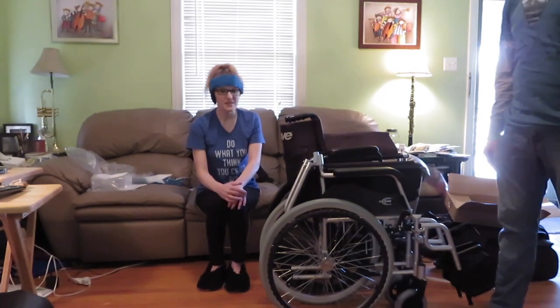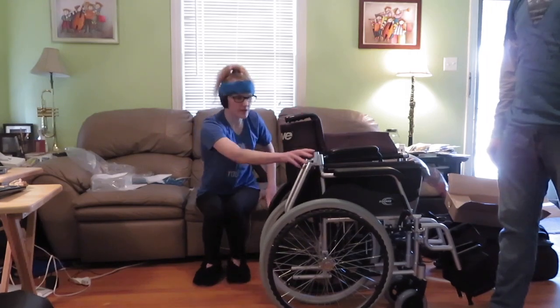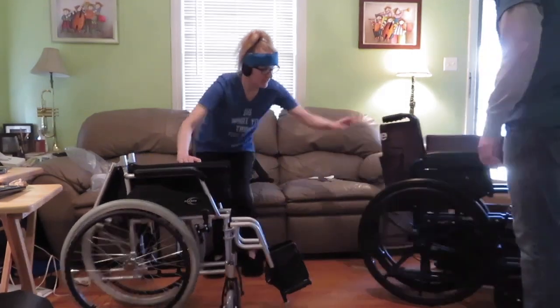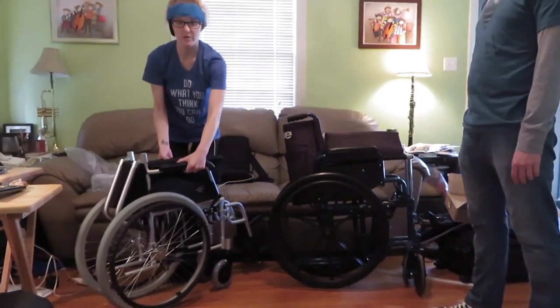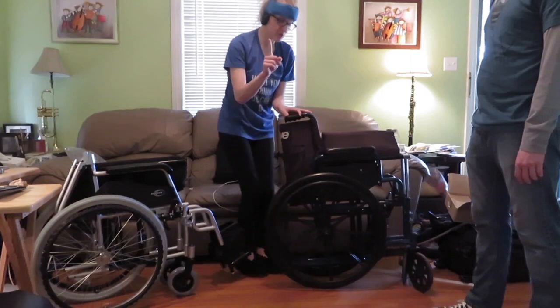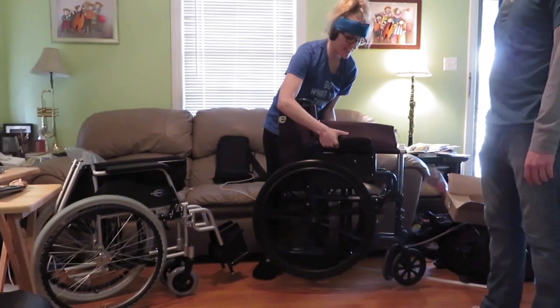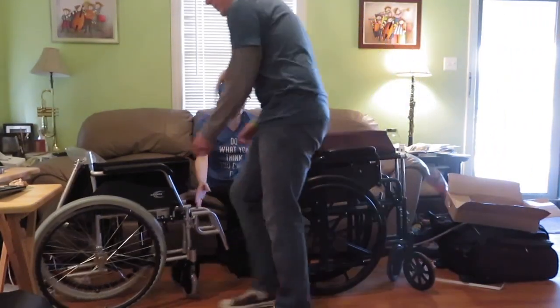Let's only take it for a spin in the house. What I was going to show on camera — now that my heart has calmed down — here's the new one, and here's me lifting the new wheelchair. Up, down. Of course I can't do it much, I just wanted to show the attempt. Is it much heavier? Yeah, to me it is. The Karman is really light.